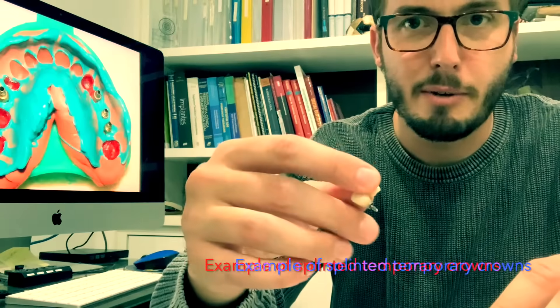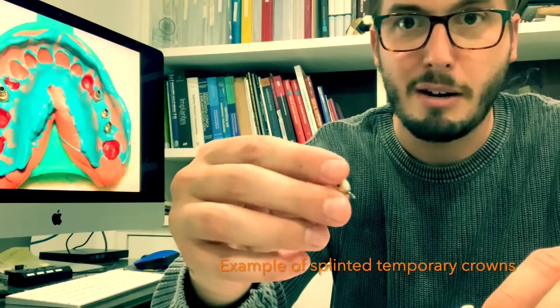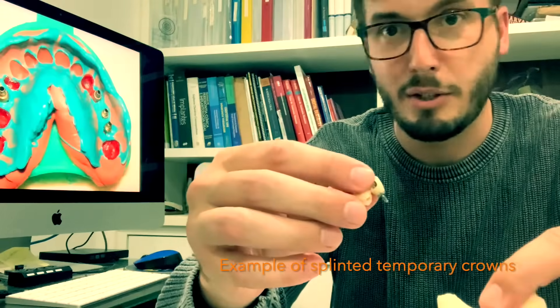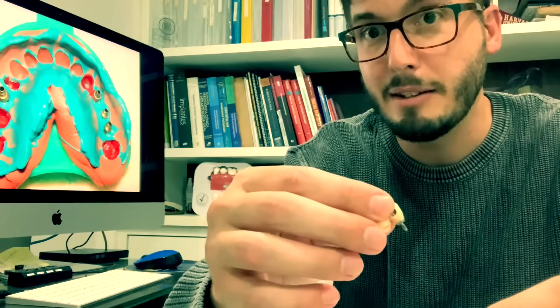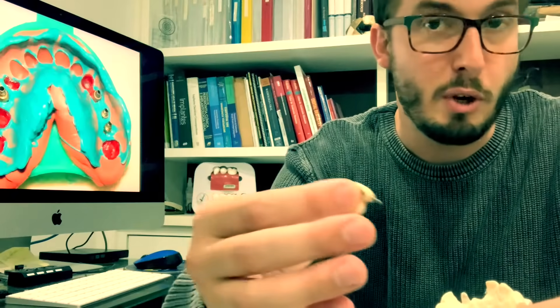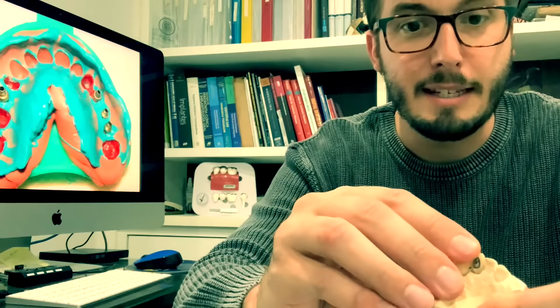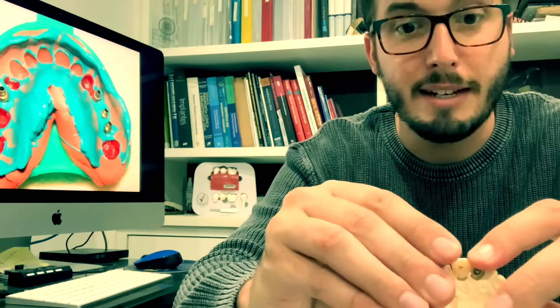And of course your provisionals or definitive crowns to try in. So all you want is to try in the patient and or install if it's the case.